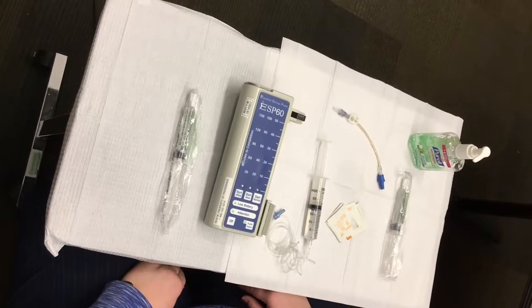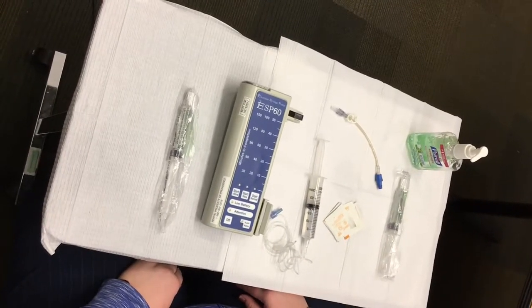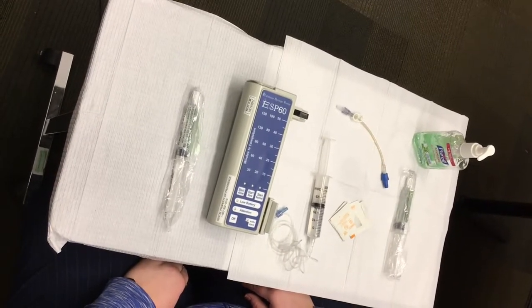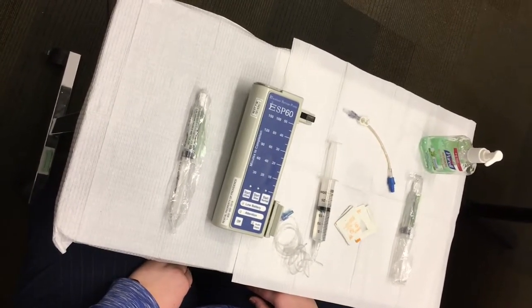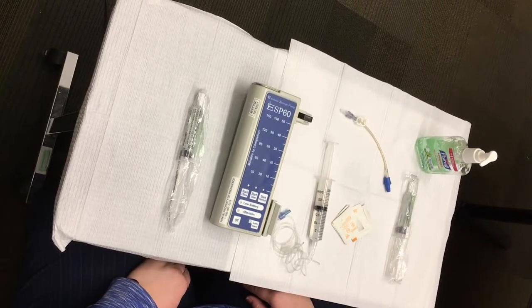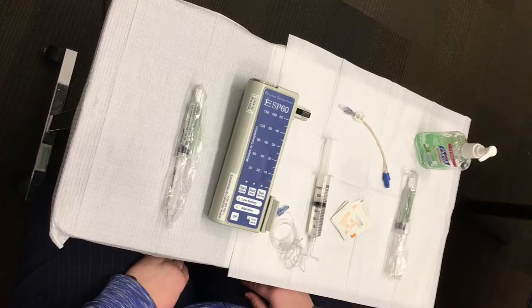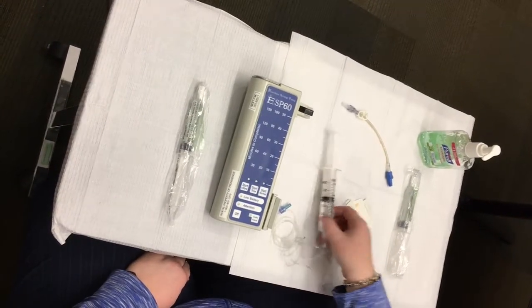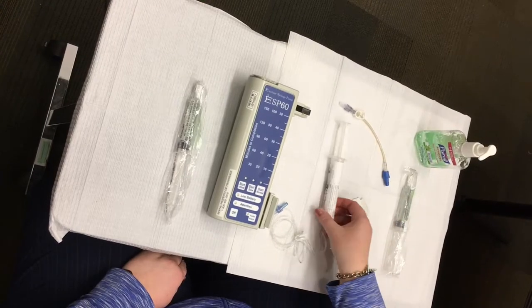This video is intended to review the key principles related to loading medication syringes into your Excelsior syringe pump. The process in this video follows the written guidelines you received from your Providence Infusion RN during your admission teaching visit. You should have already prepared your IV medication and tubing as described in the last video. You are now ready to load the tubing into your pump.